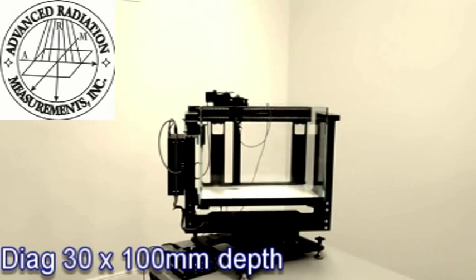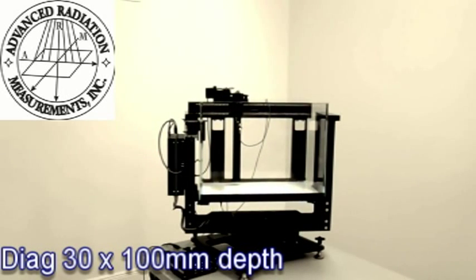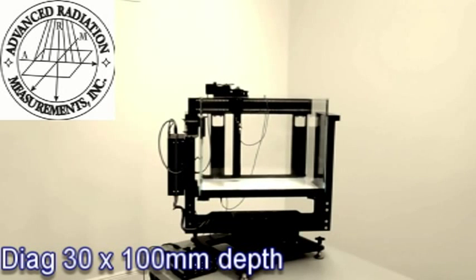Scanning now a diagonal of 30 degrees cross profiles of 20 x 20 cm at 100 mm depth.